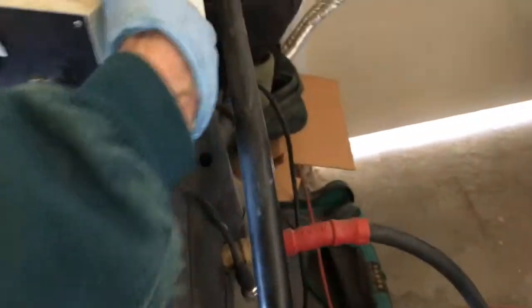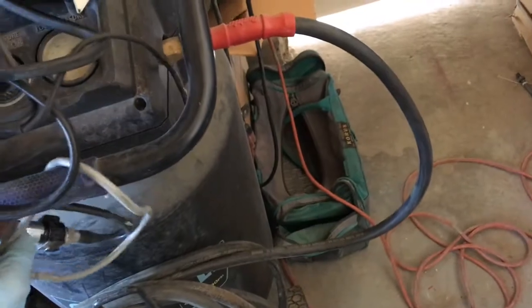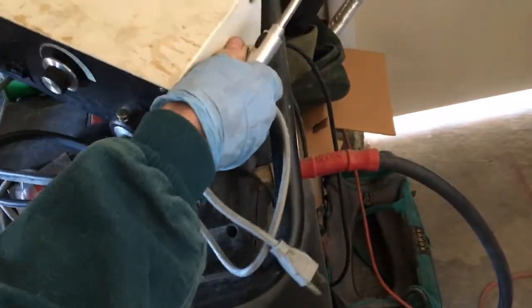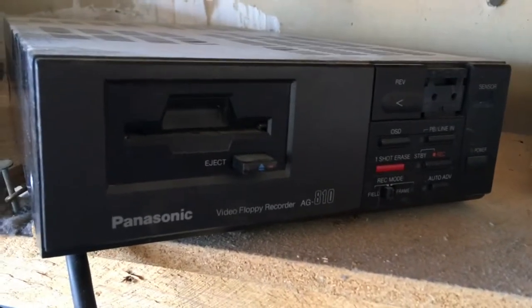The dentist would stick this part in your mouth. It has a cord for plugging in. I took pictures with it — you'd view them on a monitor. And a floppy disk came hooked up with it so you could save your pictures.